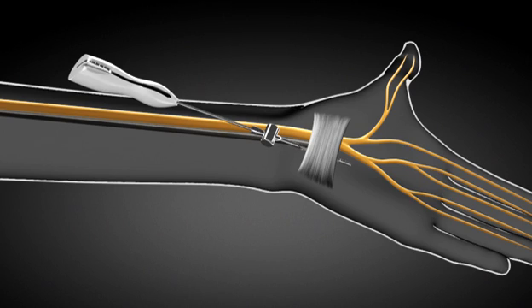It should be directed underneath the transverse carpal ligament while applying continuous upward pressure against the ligament. The Manos system is compatible with commercially available nerve stimulators.